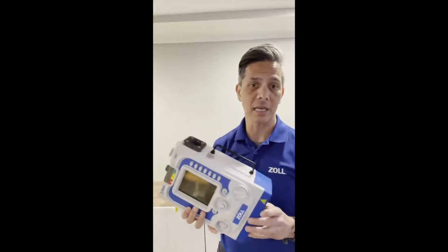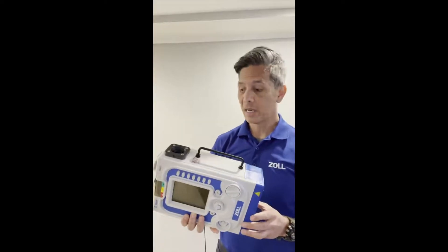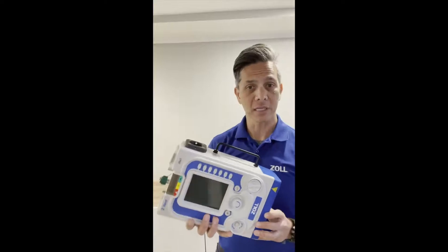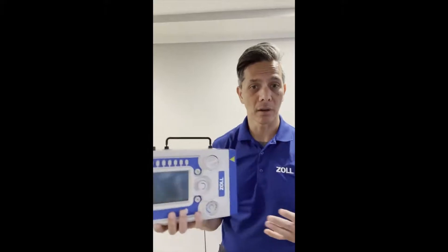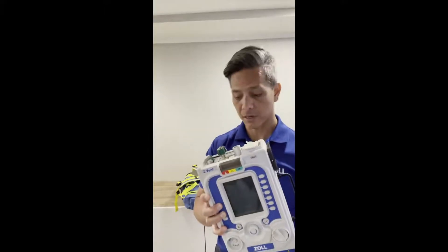Under 10 pounds, you don't have to add an extra battery, a sprint pack, or anything like that. That's another military spec we're really proud of. This vent gives you a 10-hour battery inside. That 10-hour battery is amazing, and if you don't trust it, you can always shore power your vent right into the back of your truck or on your flight and continue charging.